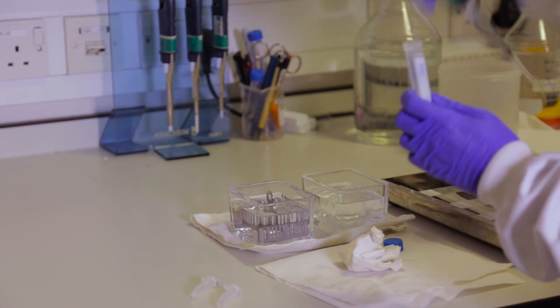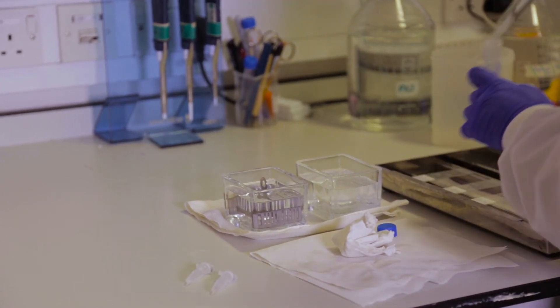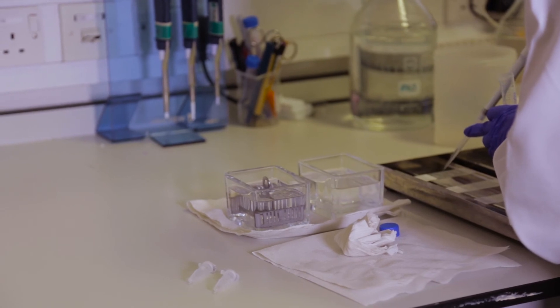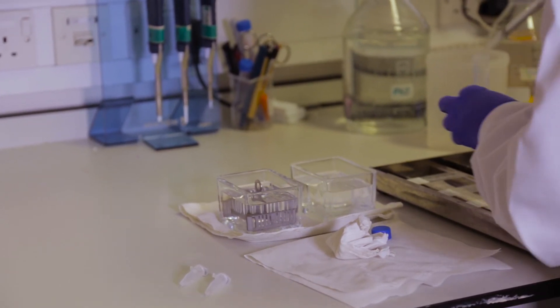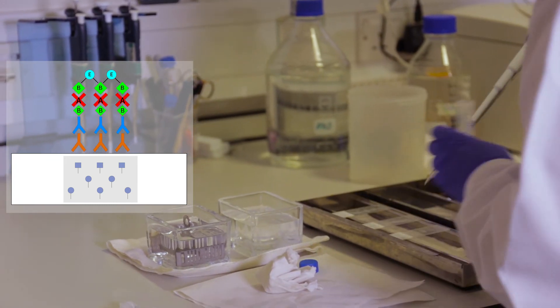The next step is signal amplification. And for this, we use the avidin-biotin complex or ABC solution. To make up this solution, you add both solution A and solution B to some PBS. Pipette on the ABC solution. You can leave this for one hour.